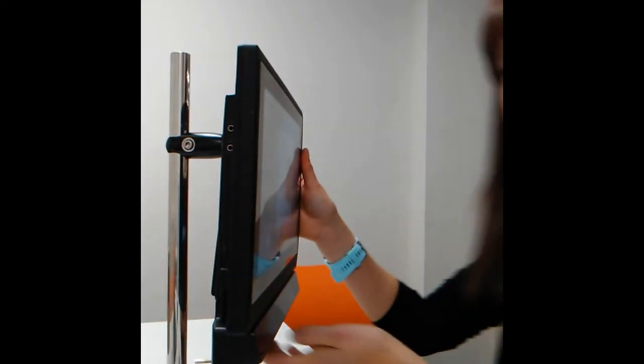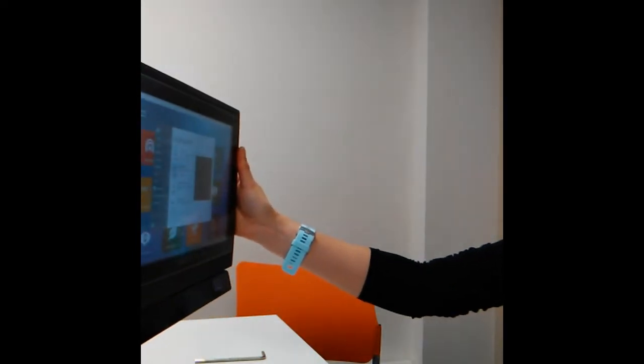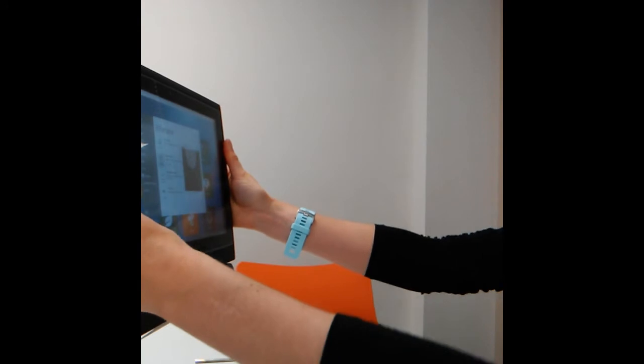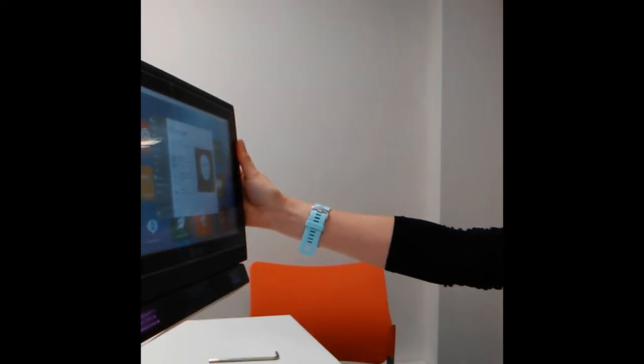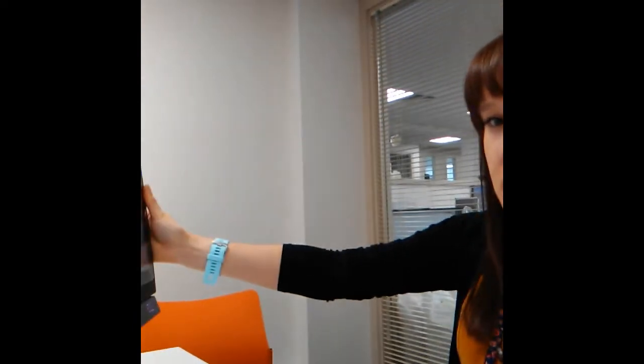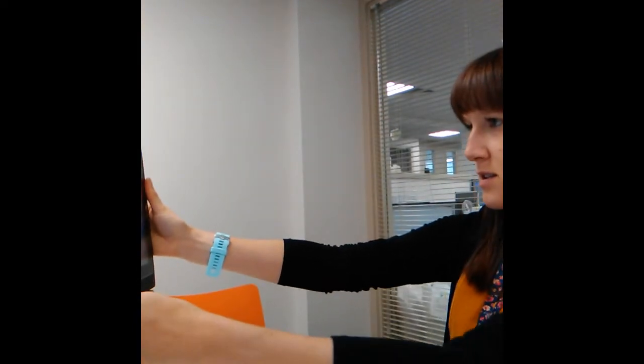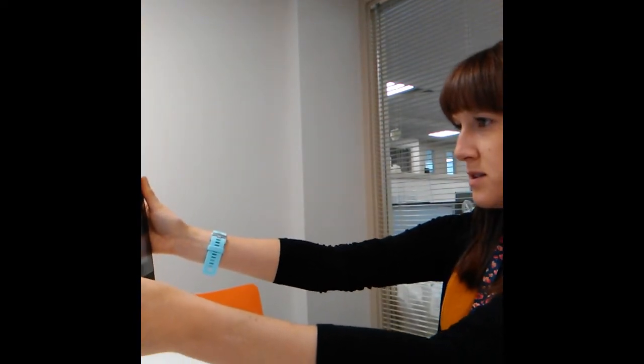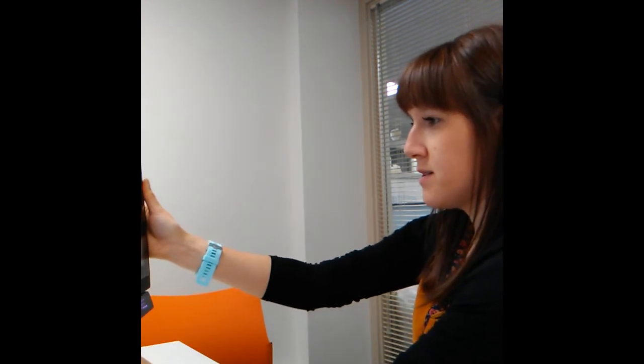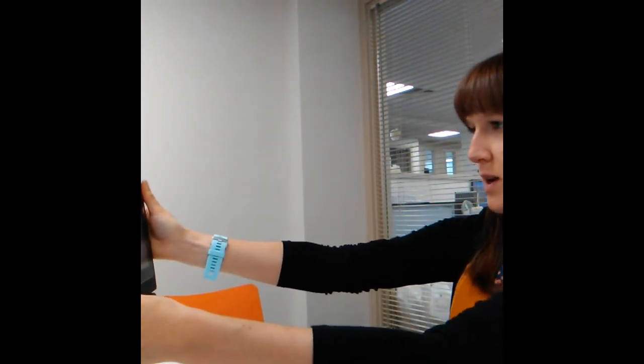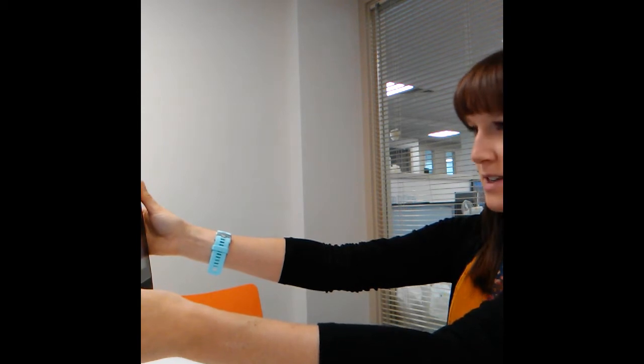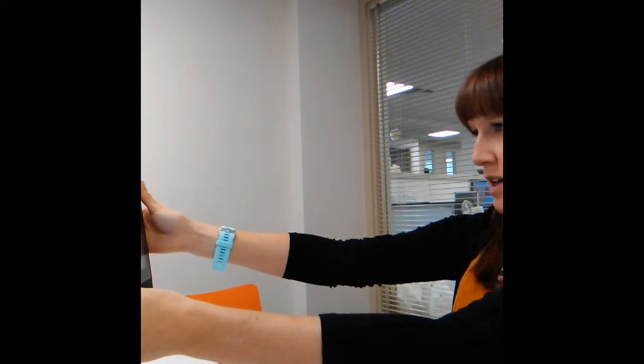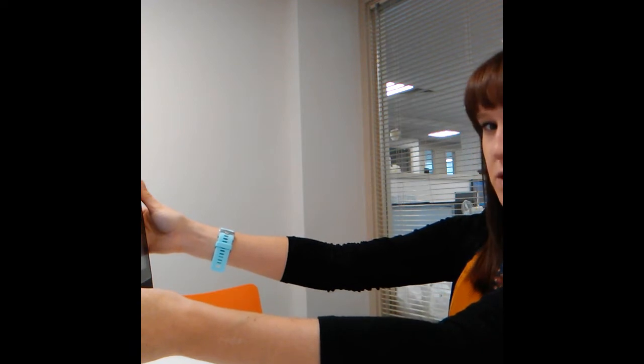Okay, let's see if I'm sat in front of it. You usually need to make sure... I'll show you in a second what that screen looks like once I've secured it, so that you can see when it's working correctly.